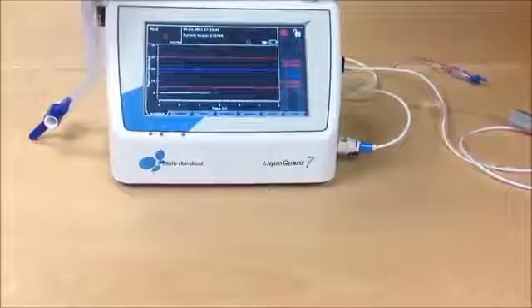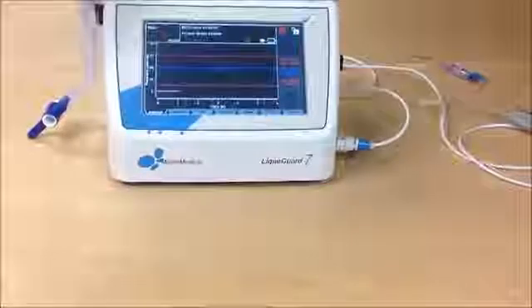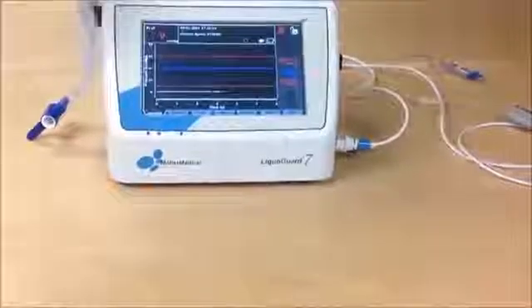Second, we don't have any pulsation anymore. Therefore, the machine will sound the pulsation alarm within a few seconds.